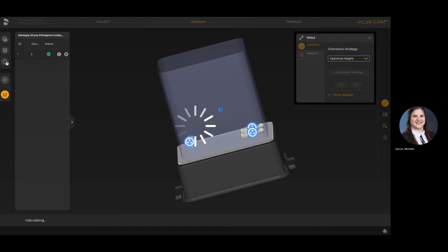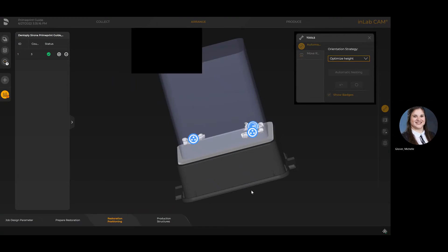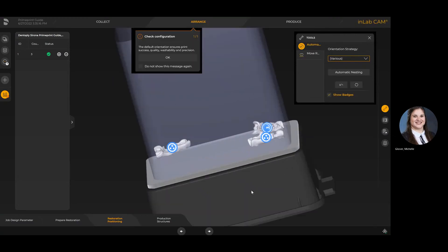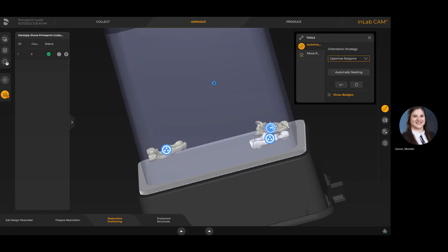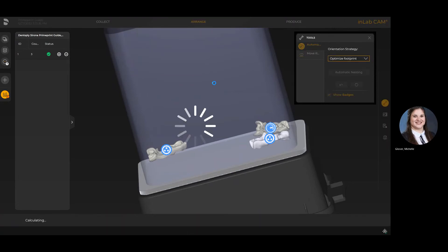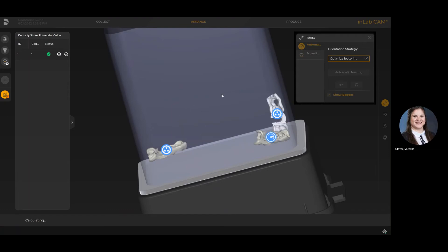I've got one that's set to optimize quality, which is what it defaults to when using the fast-forward option. However, I've changed one to optimize height, so that's going to be a speed setting. It's going to lay it a little bit flatter against the build tray, meaning less layers, so it's more optimum in terms of efficiency.